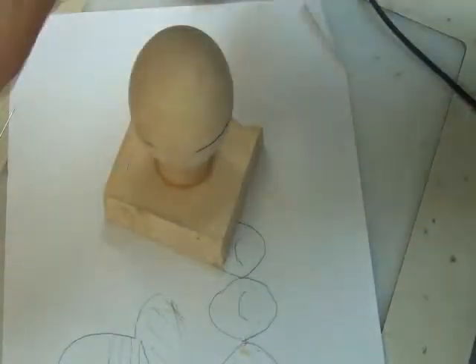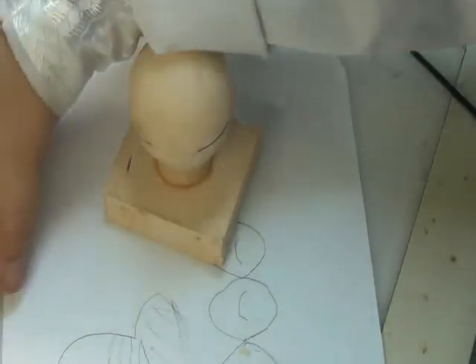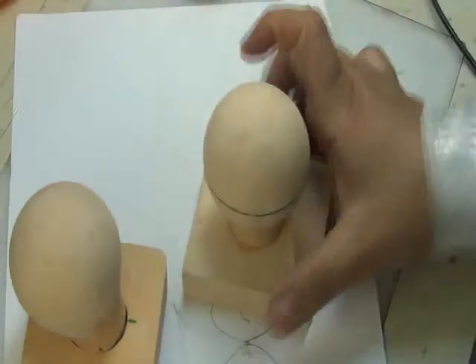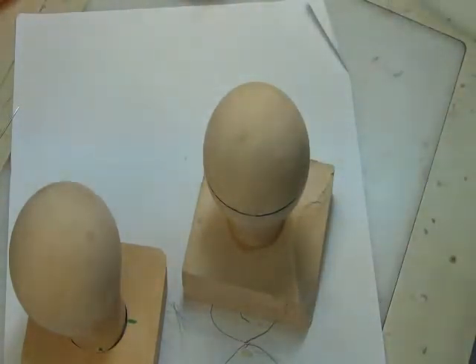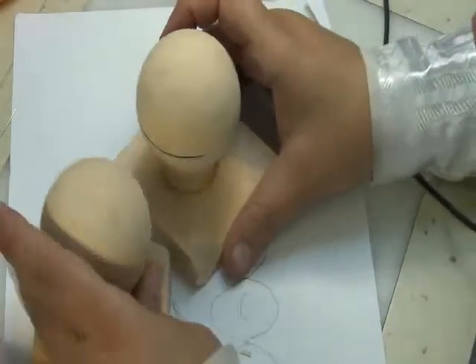Because we have bended wires and we have the wire between two teeth. I'm going to try to use this model to represent teeth that want to come in contact with each other.